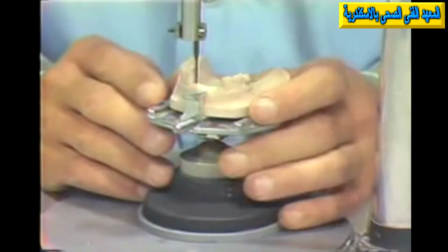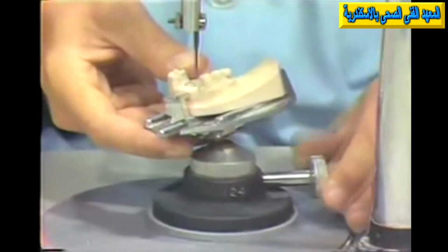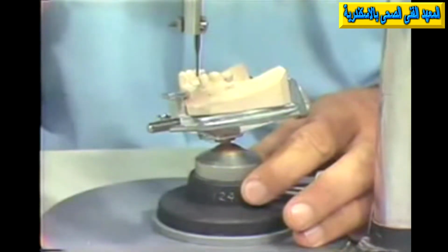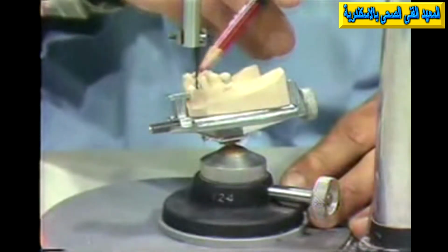Number one, if we chose an angle of insertion which caused the partial denture, let's say, to be tipped at a steep angle, we would have to visualize some of the partial denture, and particularly the area of the replaced teeth, as the area of the analyzing rod here. And if we were having a replaced tooth slide at an angle like this, notice the triangular space shown by the light. This area, we could not build the partial denture into this area because it would hit the occlusal area here on insertion, constituting an interference, and it would not clear this prominent point, so that the replaced tooth would have to be no further or no closer to the abutment tooth than the analyzing rod.